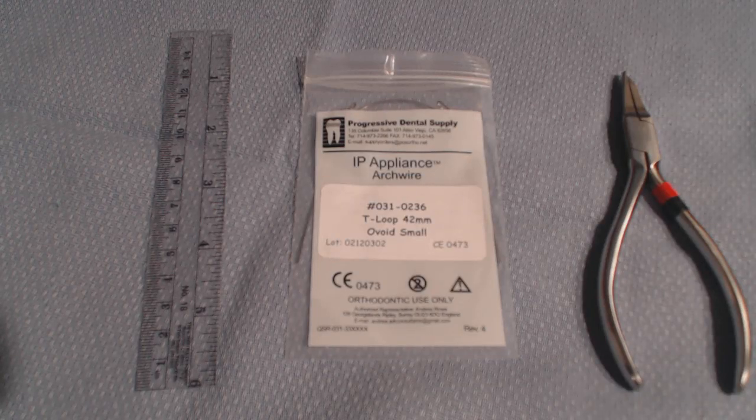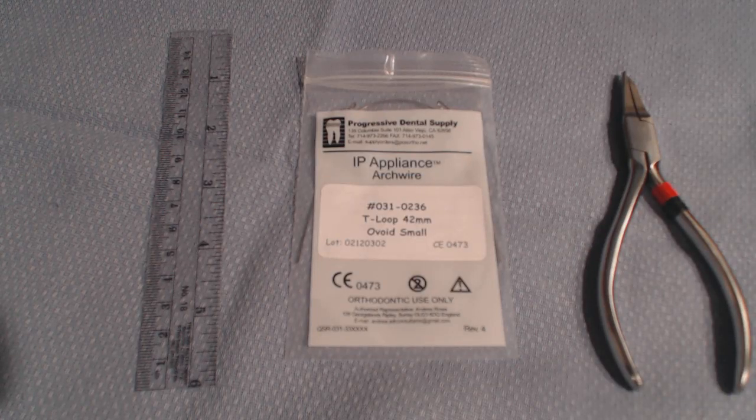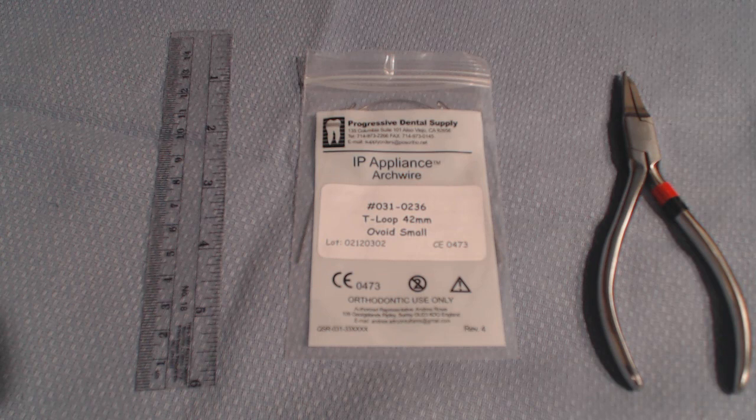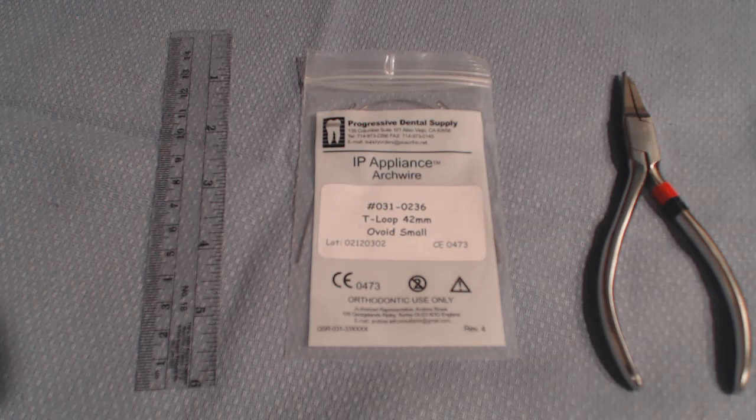This video discusses making an intrusion bend on a T-loop arch wire. This is very often necessary during mechanics, especially extraction case mechanics.